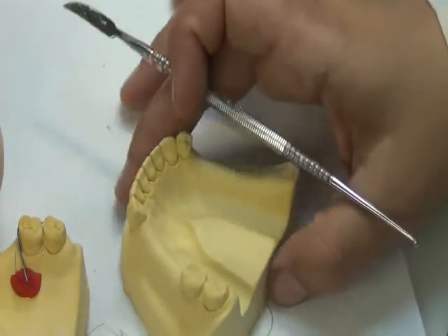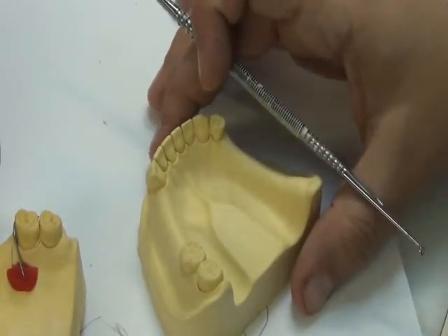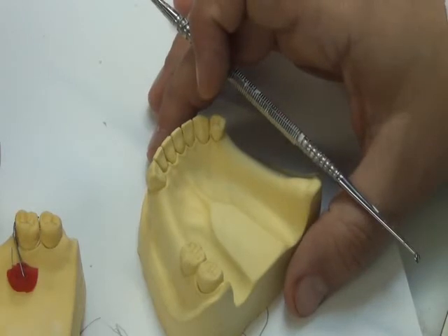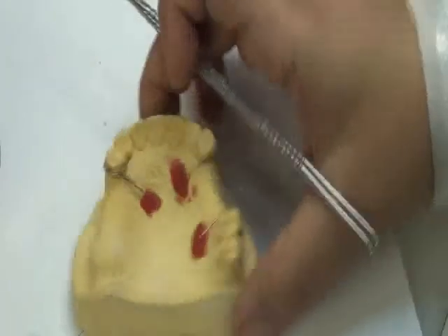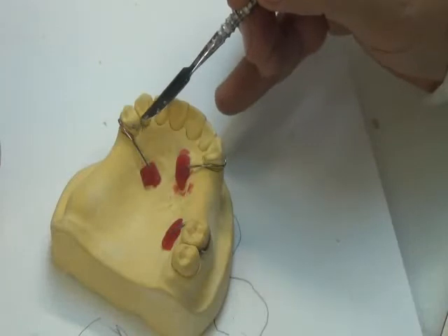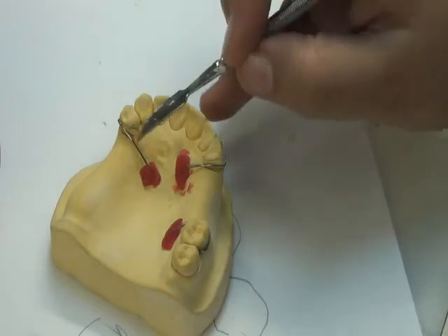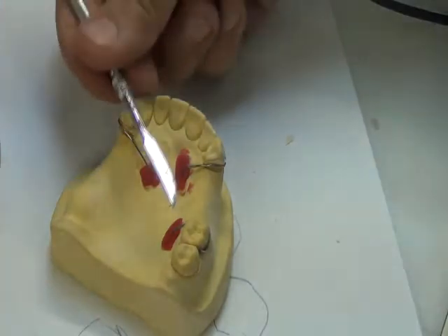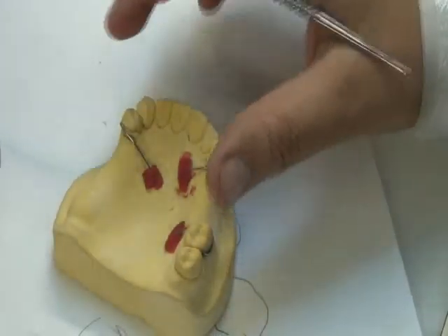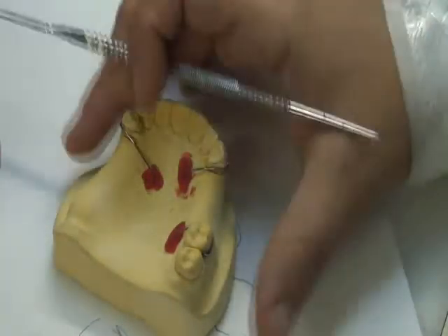Okay? And this was the question where somebody was asking, why do I cover with that blockout? Do you remember the plaster blockout? Why do I cover the lingual side of the tooth? So this is the answer. Because when I draw the survey line on the lingual, I find that there is a lingual undercut, correct? If the acrylic comes into this lingual undercut, and there is another lingual undercut here, they will let the acrylic in, and it's not easily taken out because acrylic is solid and the teeth are solid.